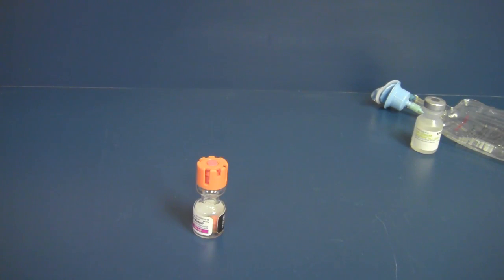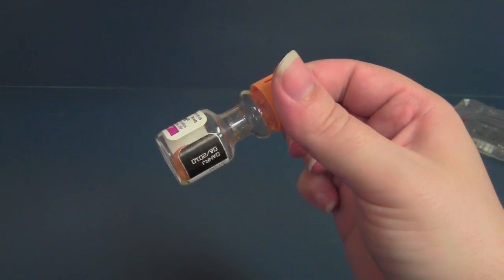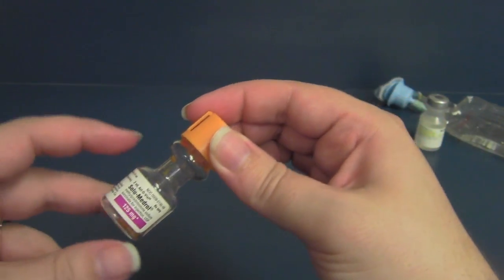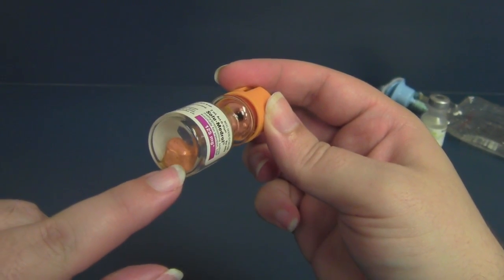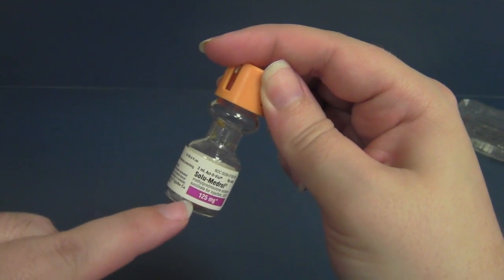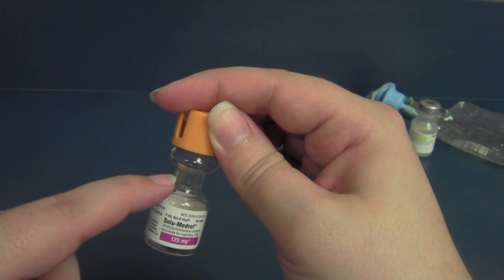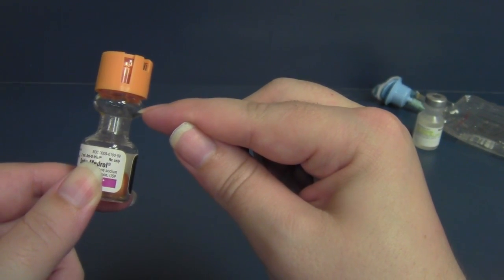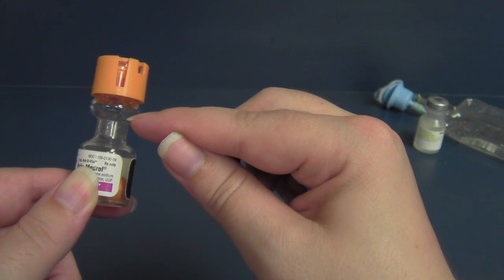This is one type of vial that you might see in reconstituting medications. This is Solumedrol. Solumedrol comes in a very unique vial which has a neck on it. This neck generally has a plunger, which you can see in the bottom. This vial has been used. So you have powdered medication in the bottom, you have a stopper in between, and then in this bubble top up here you have the diluent, the sterile water or normal saline.